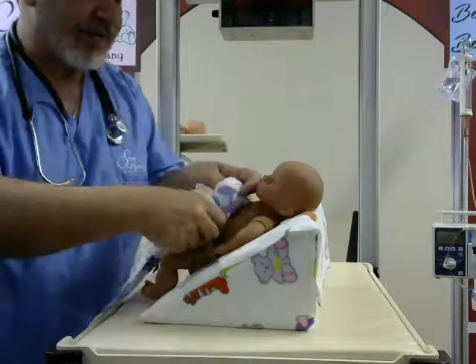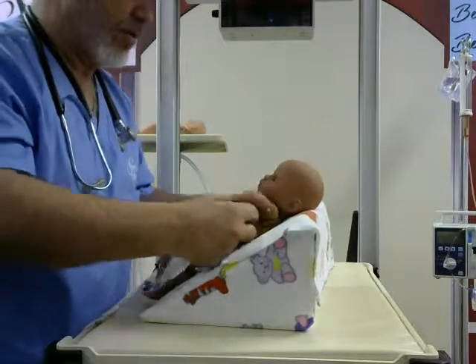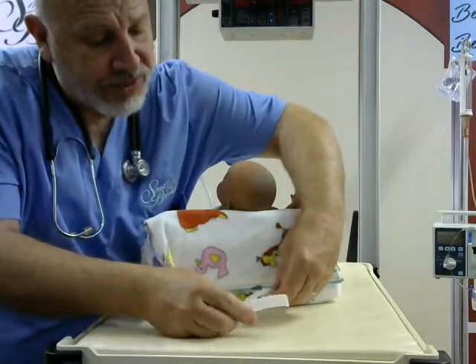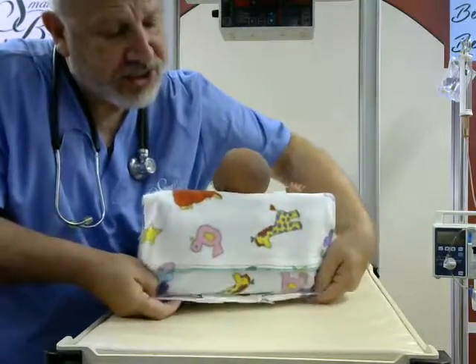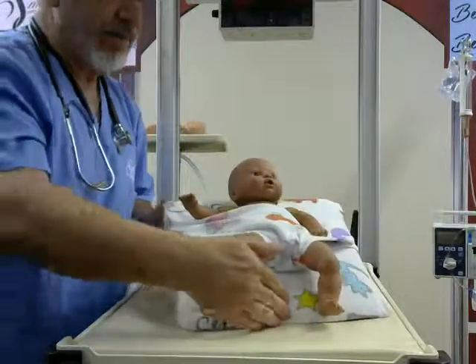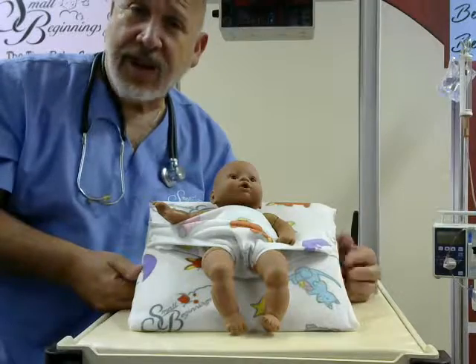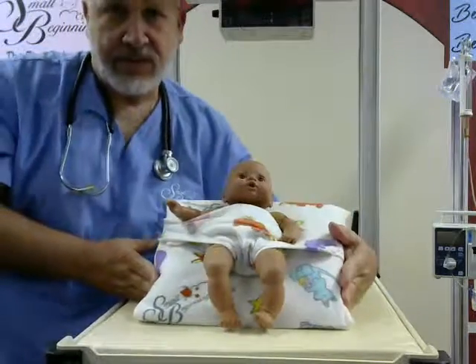This baby is much larger so we don't have to worry about the crotch as much. Slide that right underneath the baby like so, flip it around, and then gently drop it underneath. And voila — your baby is nice and snug. This is the Reflux Wedge and Reflux Harness, and it's available right now. Thanks a lot.